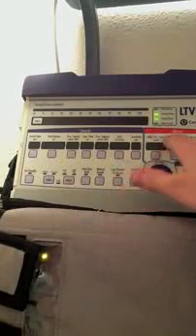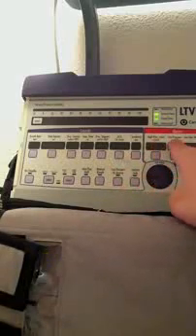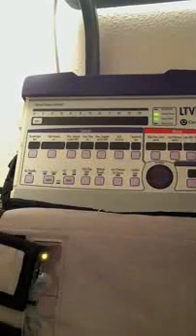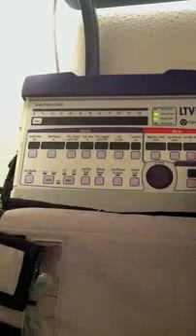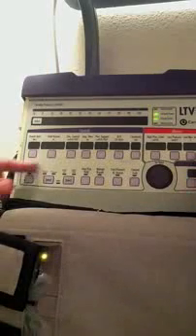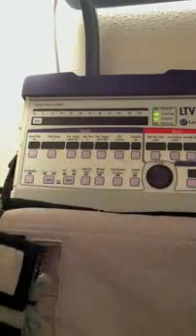These are all of my alarm settings here. This is my high pressure limit alarm, my low pressure limit alarm, and then my low minute ventilation alarm. Just to the right of the low minute ventilation button, you can't see it, we will show it to you here in a minute, is the silence / alarm reset. So this button over here and this button over here are probably the two most important buttons that we have to deal with. So let's go ahead and turn the ventilator on.